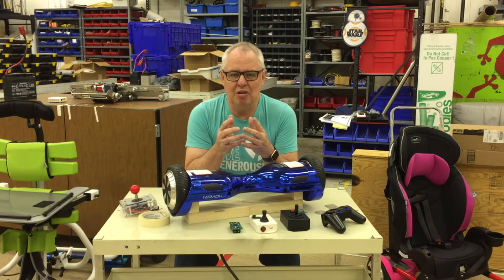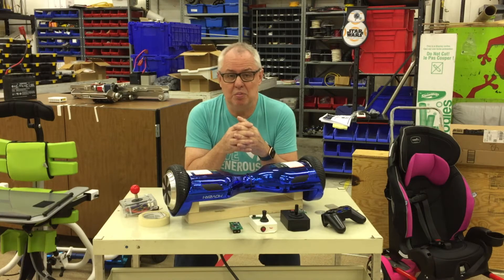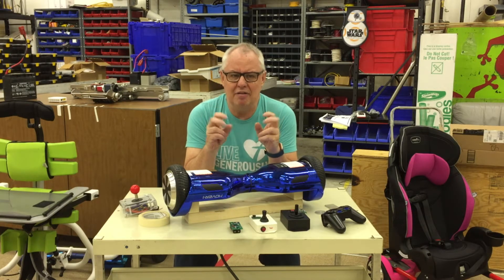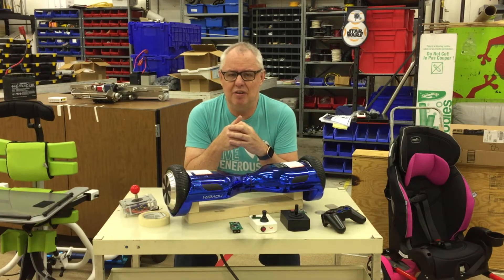My most important demographic is young children who quickly outgrow expensive commercial mobility devices. My goal was to create a modular power drive that could be easily added to any wheeled device to provide greater mobility and independence to someone who either can't afford or is not well suited to a commercial power chair.